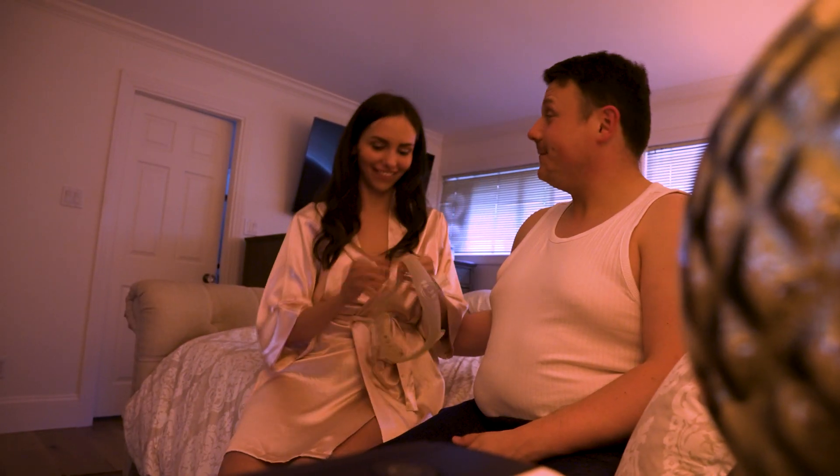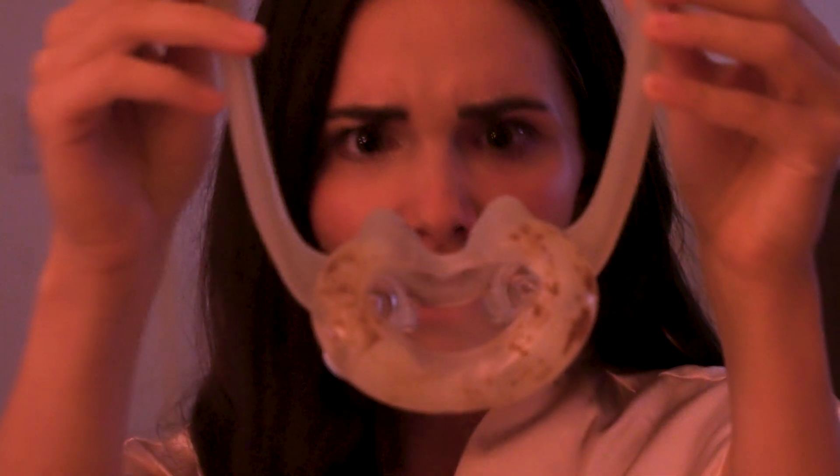Today I want to talk more about why you want to clean your CPAP. Now obviously a dirty CPAP is going to be gross, but why exactly does bacteria grow? How does it grow and how does that make you sick? I think a lot of people neglect cleaning their CPAP or other medical equipment because they don't really understand how these things can make you sick if they push a little bit overdue on their cleaning schedule.